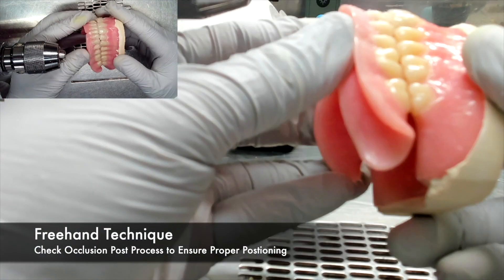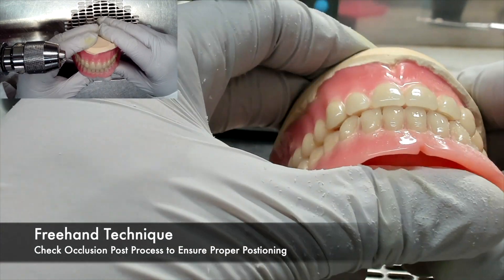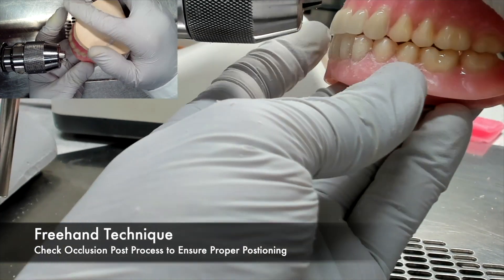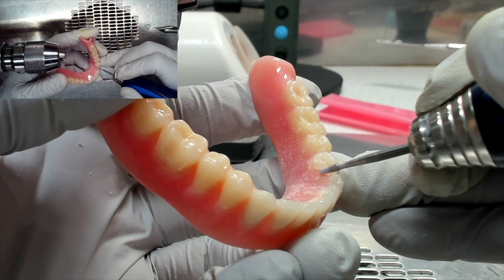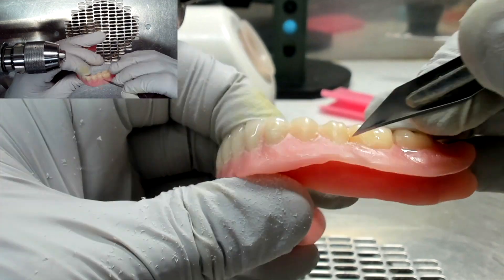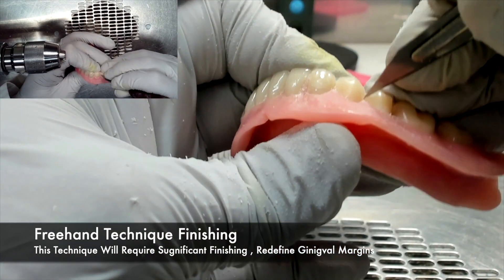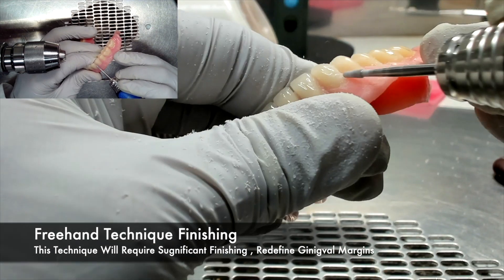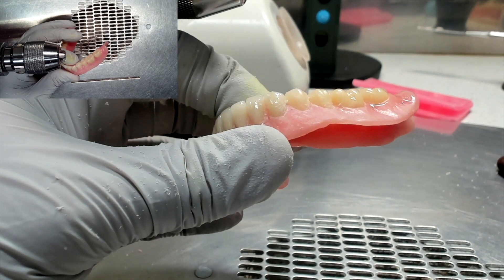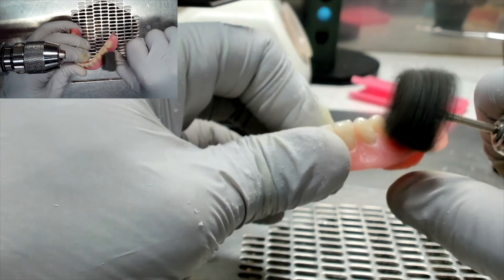After processing this type of tooth repair, it is always important to check the position of the tooth and to check occlusion to make sure it didn't move while it was in the pressure pot. Performing this freehand technique can sometimes result in significant finishing. Be sure to redefine all the gingival margins on the buccal and lingual sides. The freehand technique is one of the fastest methods of performing a tooth repair, and is usually done for single teeth that have a pretty good seat in the denture base still.